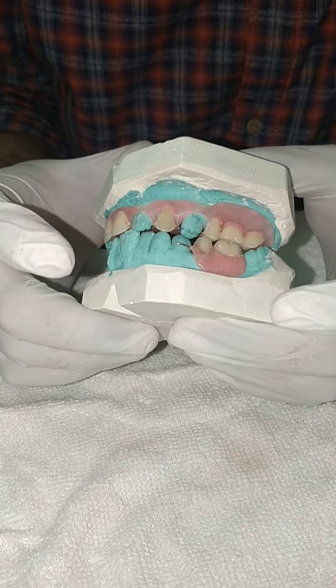This is the lower nesbit bridge I have made. The patient has one root system, so I have made this as an over-partial for them. This is how it is attached, and you can check the retention — it is nicely retained and also in good retention.